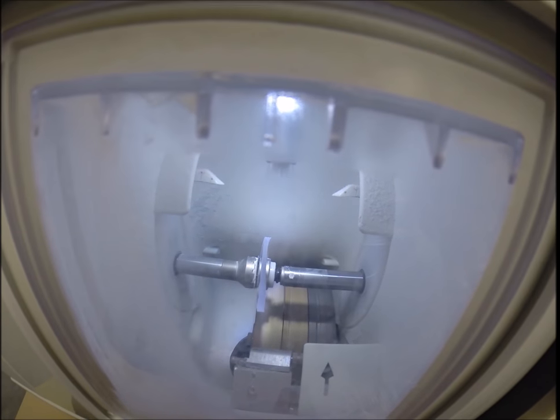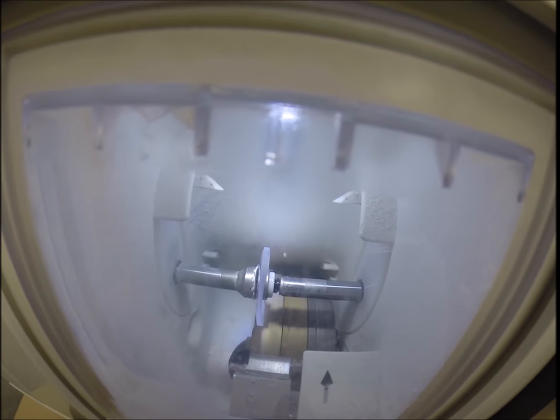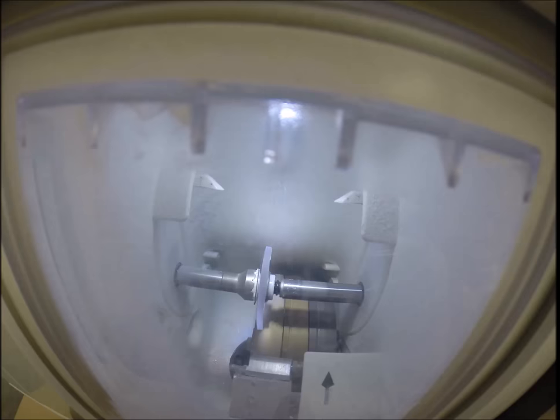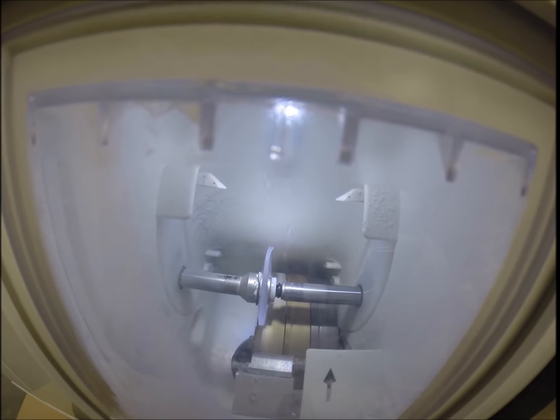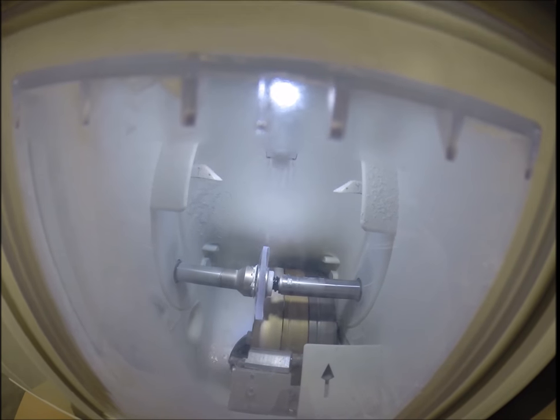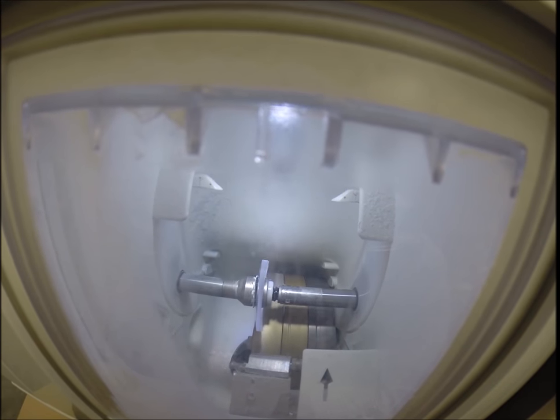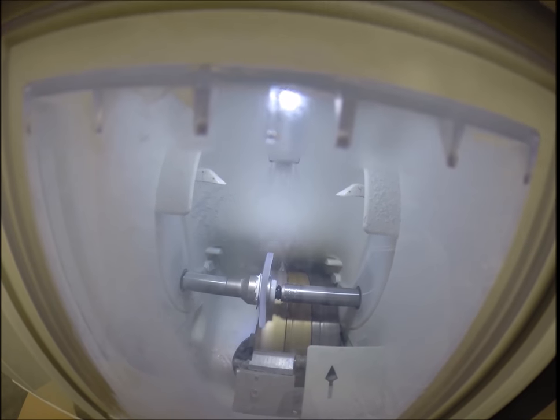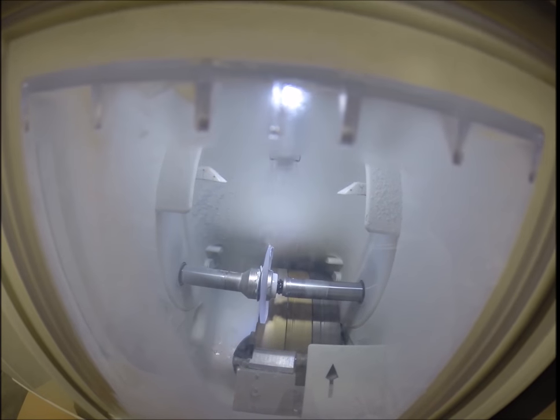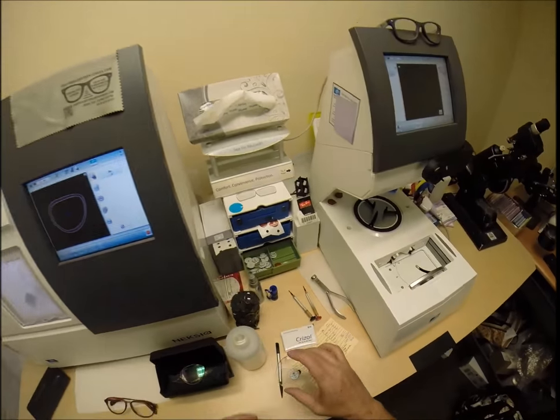The second feature is it's a reflection-free lens. So when someone's looking at you, they're not looking at their reflection in your glasses. It makes for much better eye contact. The other nice thing is if you've taken a selfie or someone takes a picture of you with a flash, you won't see the flash lit up in the lens. You'll see just your eyes.